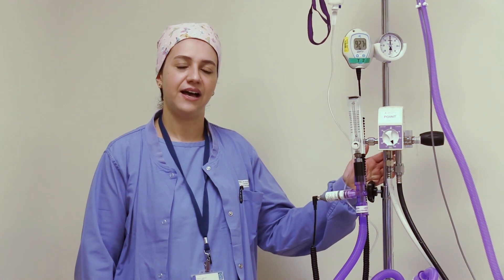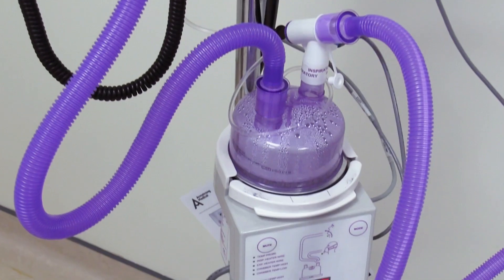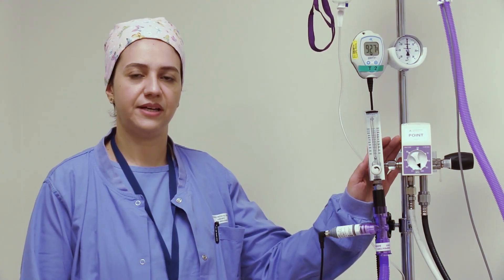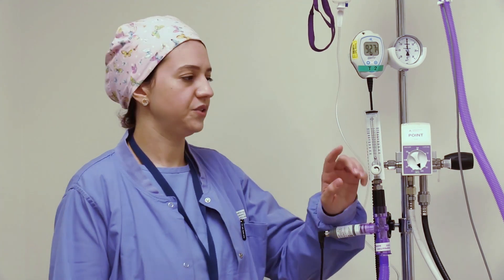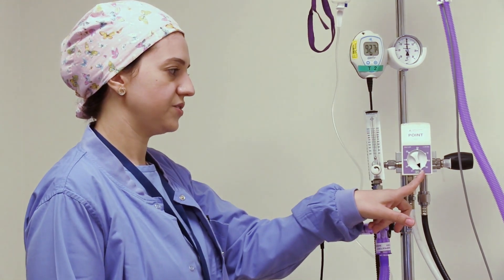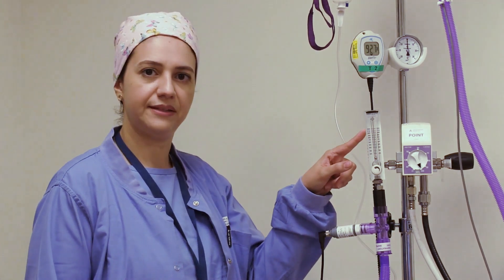Welcome to this demonstration on high flow nasal oxygenation and clinical applications. The high flow nasal oxygenation therapy is an oxygen supply system capable of delivering up to 100 percent humidified and heated oxygen with a flow rate up to 120 liters per minute.